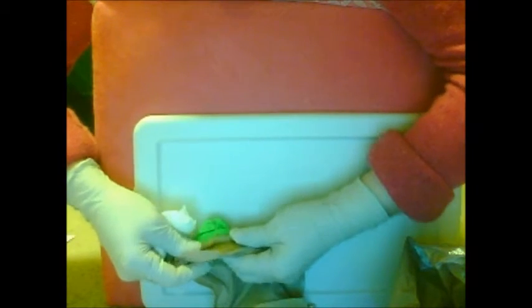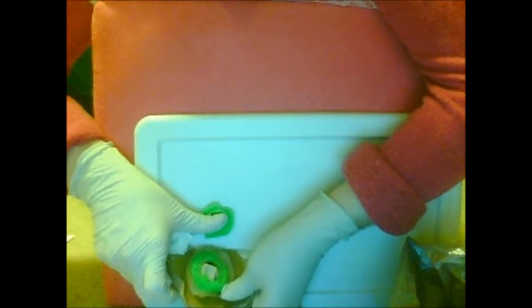Once you have all of this done, I usually have to re-wet the rag or diaper. So you get a hold of the rest of the thing — not your stoma, though. There goes my Play-Doh stoma. You won't have green Play-Doh on there, I promise. But there will be some feces.